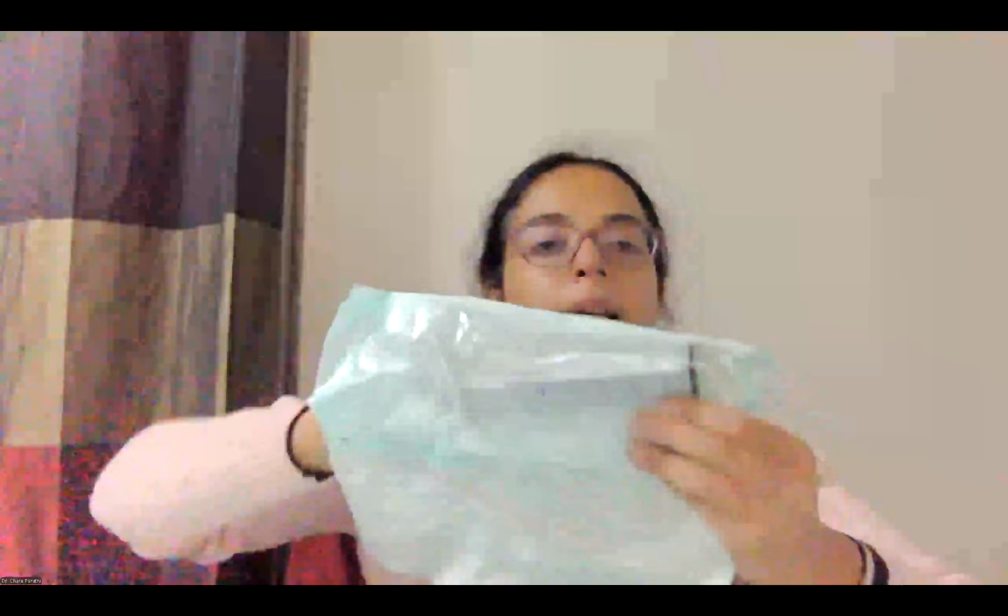They can be used in place of an aspiration pump. When you're using your aspiration catheter and the aspiration catheter is sitting at the mouth of the clot, you can either connect the hub of the catheter to an aspiration pump. And if the aspiration pump is not available, you can connect it to a vac-lock syringe and lock it so that this aspiration effect can be there for around 1 to 1.5 minutes. And then you can pull the entire thing out and pull out the clot.